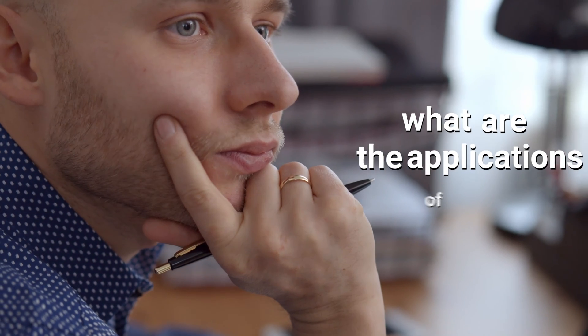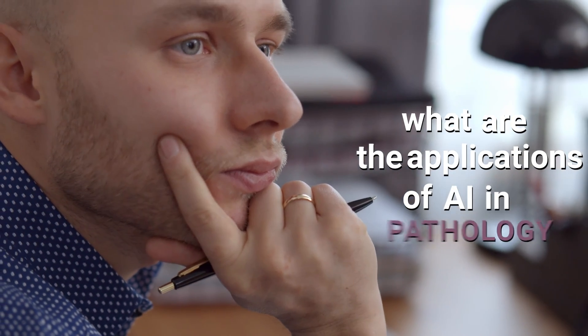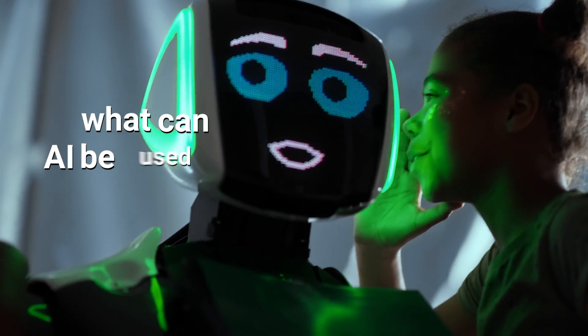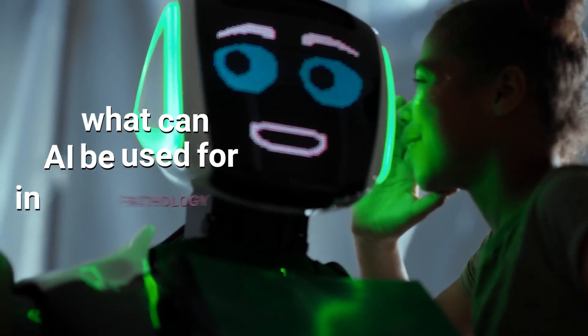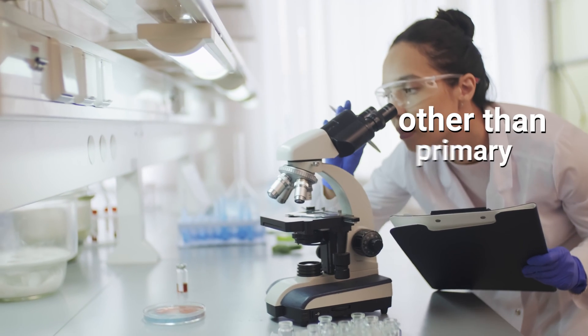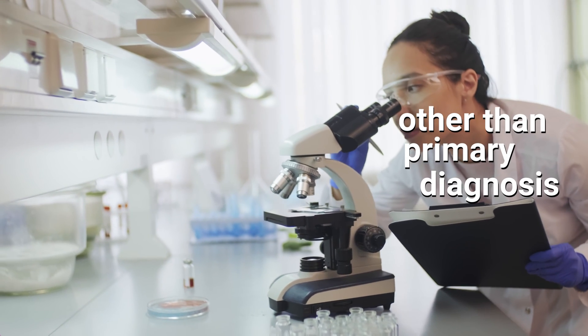This is an amazing example, but what are the applications of AI in pathology? What can AI be used for in pathology other than primary diagnosis?